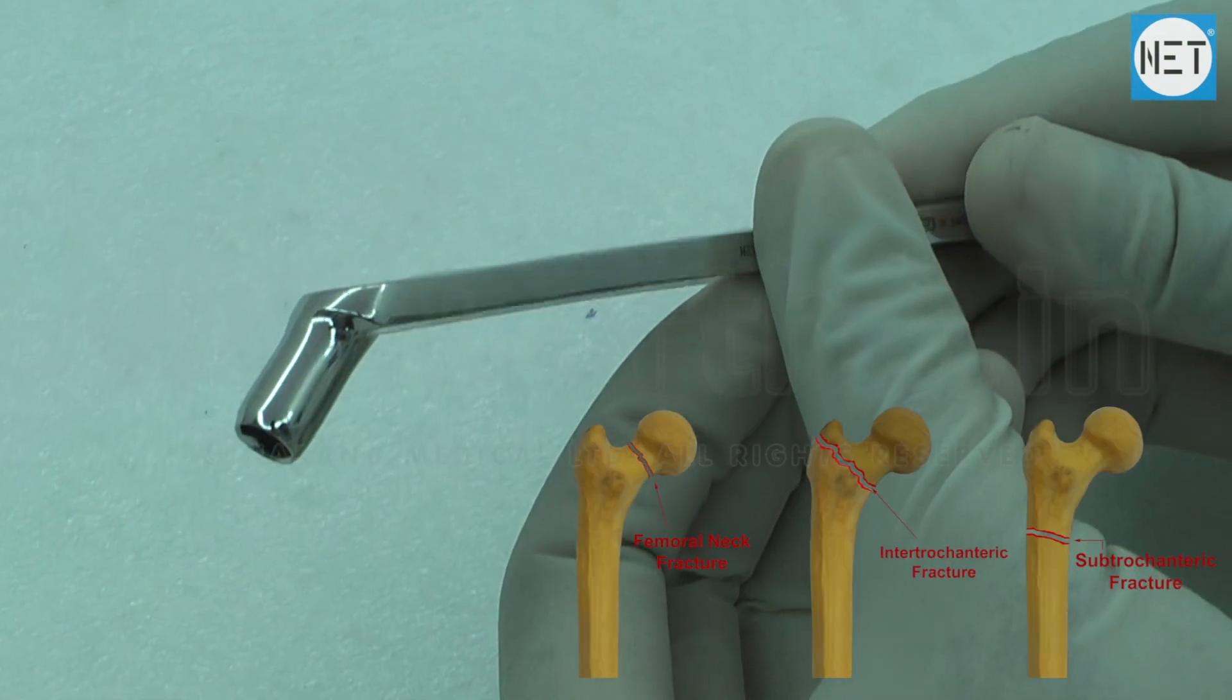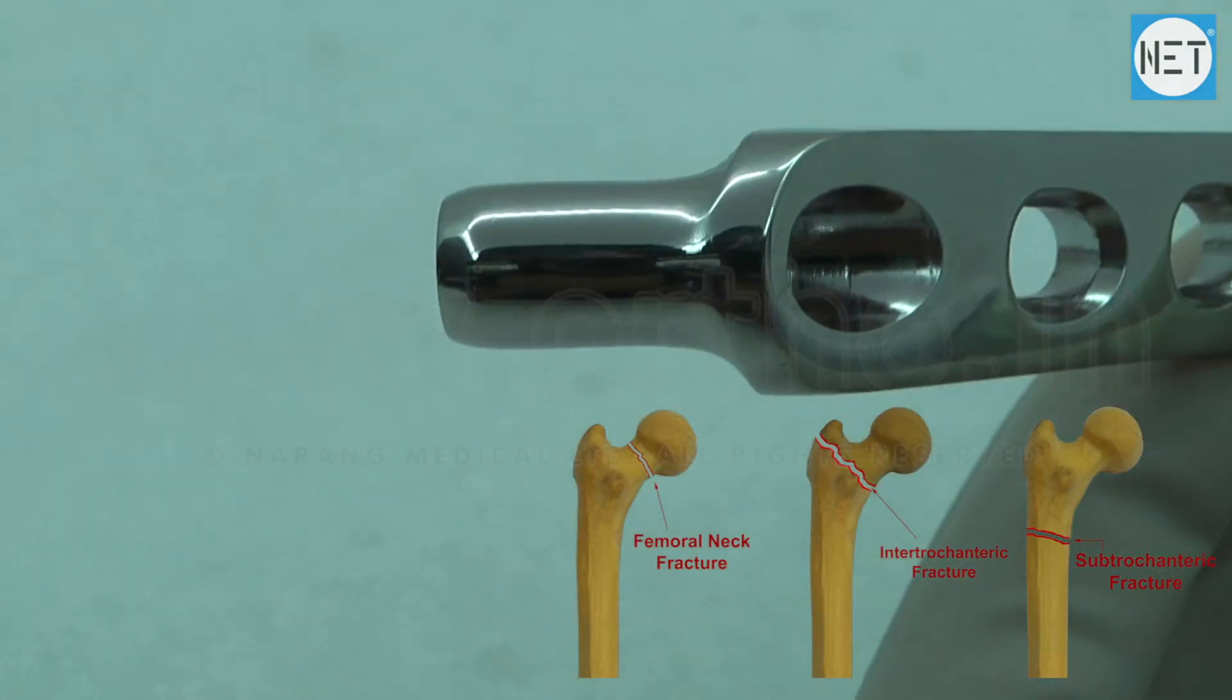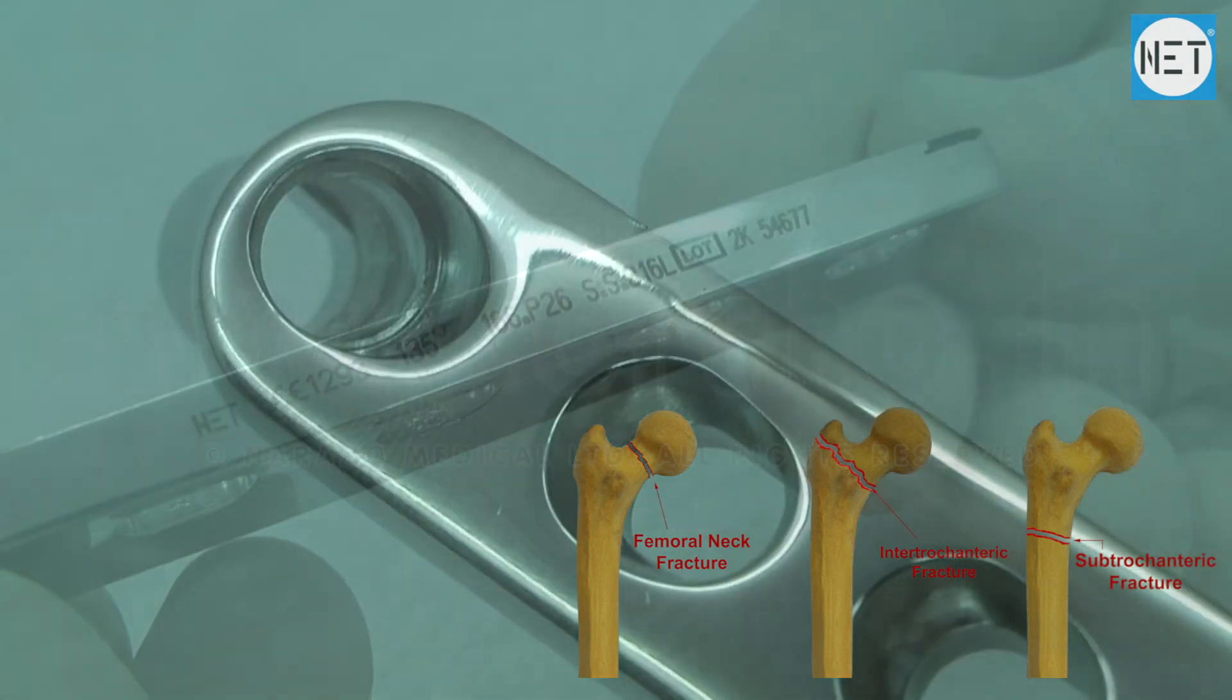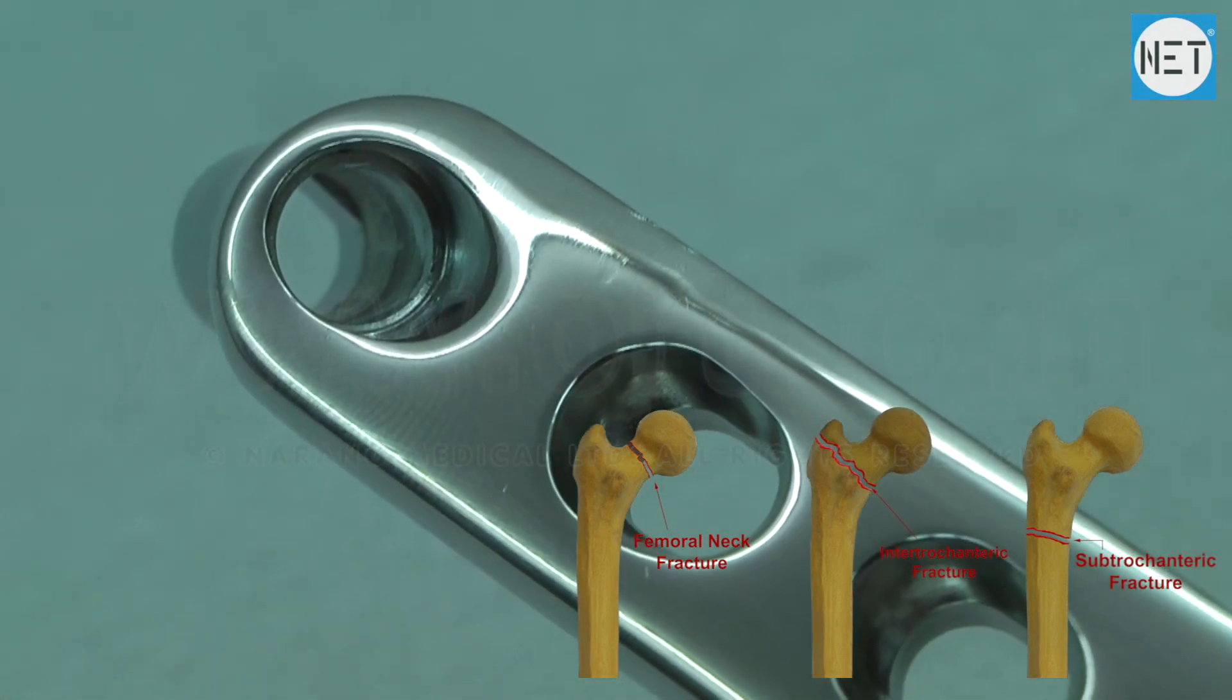These plates are used for simple and multiple pertrochanteric and intertrochanteric fractures, fractures of the femoral neck, and certain subtrochanteric fractures in pediatric patients.